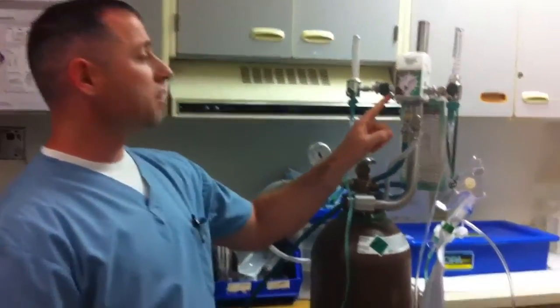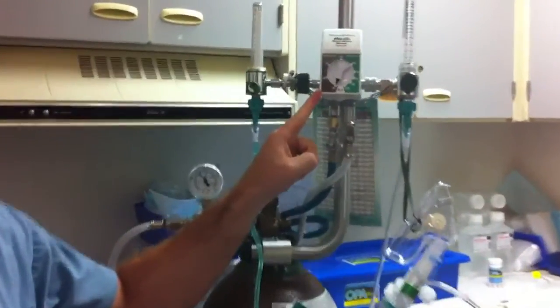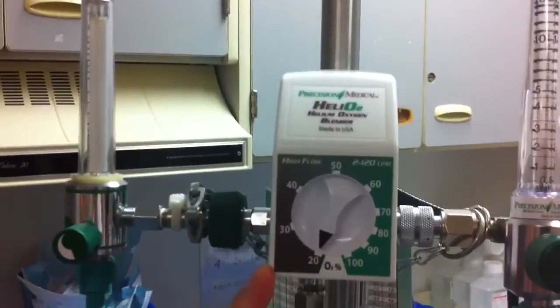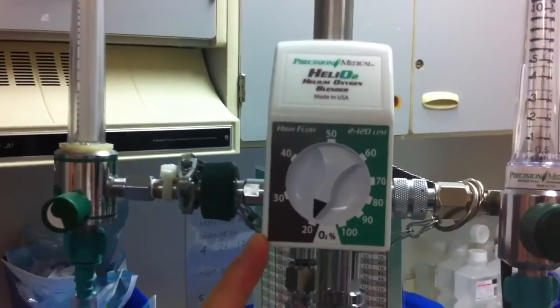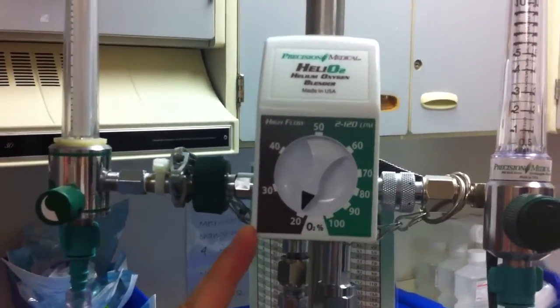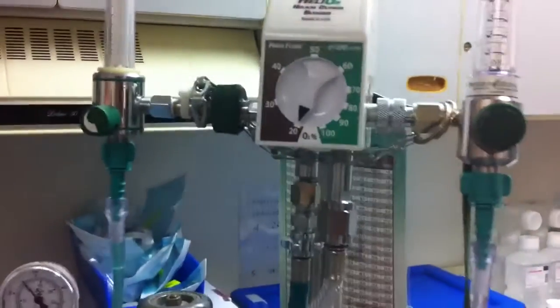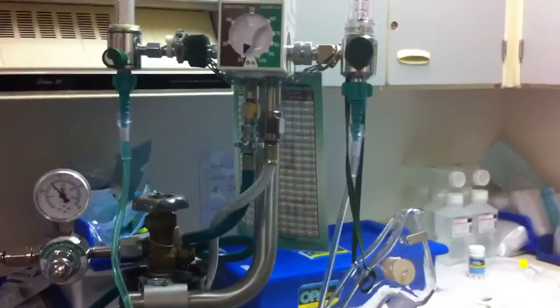This is the Heliox Blender that we're using here. It's from Precision Medical. What's nice about this system is you can incorporate it with use on quite a few different therapies. I'm going to go over the setup, the basic setup of this model.